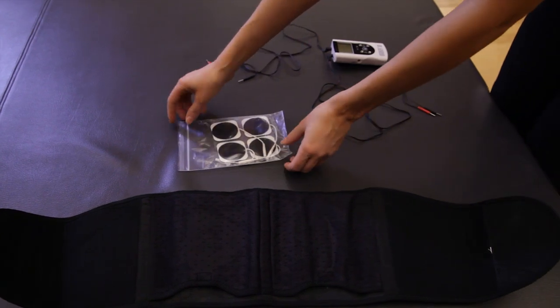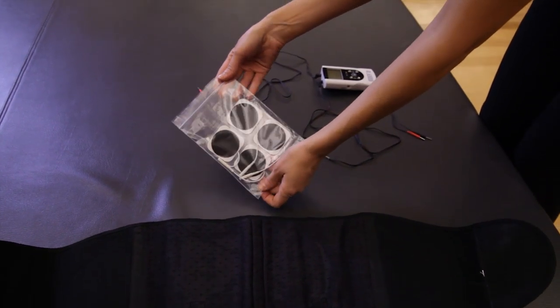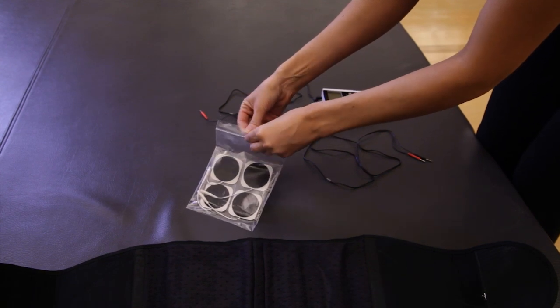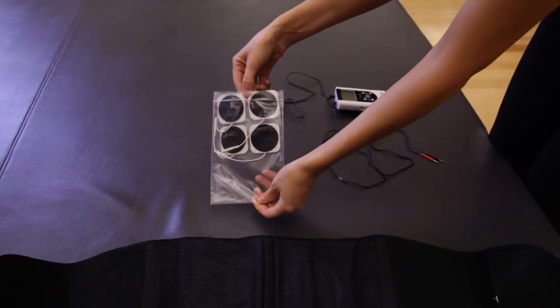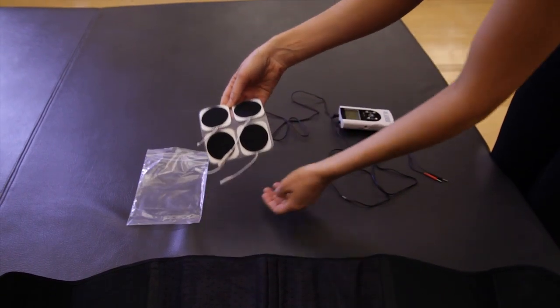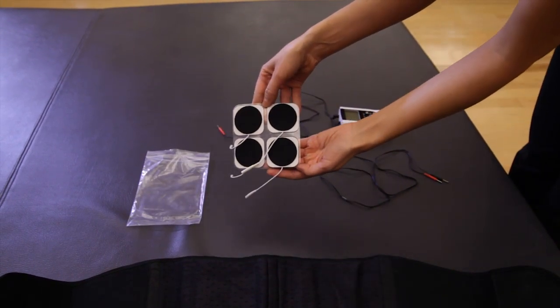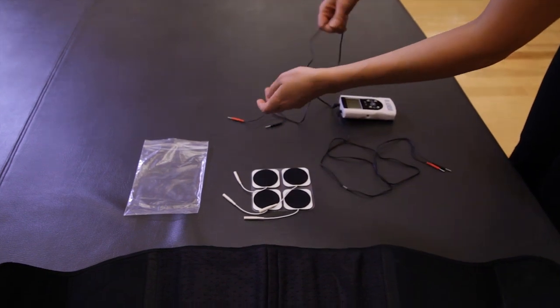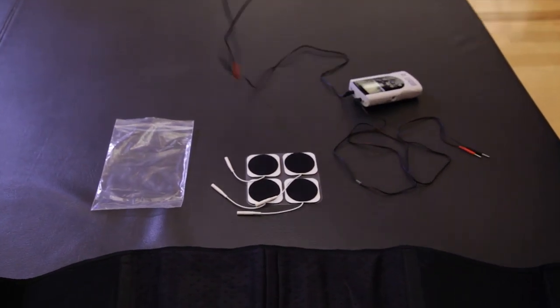The TENS device can be used with a variety of conductive garments to improve overall treatment. For the low back garment, connect the Velcro electrodes to the lead wires the same way as the traditional electrodes.